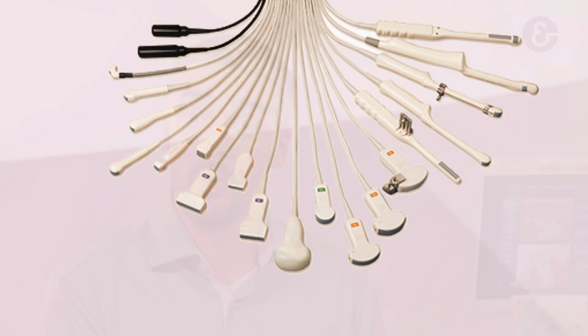Ultrasound technology is rapidly advancing and being refined and is aimed at both increasing image quality and opening new fields of applications. So what equipment do we need for MSU? First of all, we need a transducer. Transducers come in various shapes and dimensions and are designed for the body parts they have to assess. For MSU, we generally use the straight linear transducers.